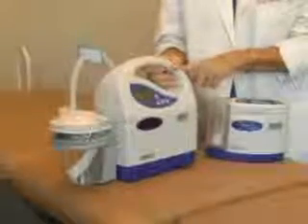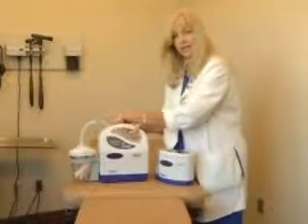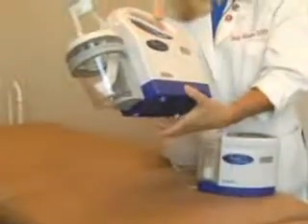One of the safety features that sets the Pro 3 apart from other negative pressure systems on the market is inside the blue casing — an internal filter, or dual filter system, that is patented specifically to the Prospera series of pumps. This is the external filter, but inside, should gaseous vapors or liquids pass the external filter, the internal filter prevents contamination of the pump components as well as cross-contamination between patients.